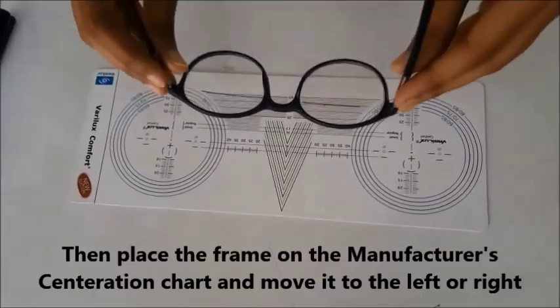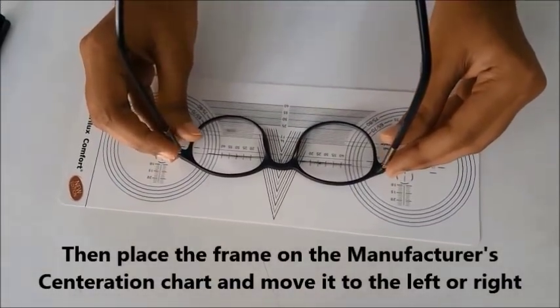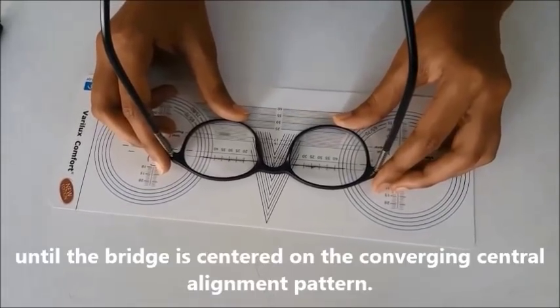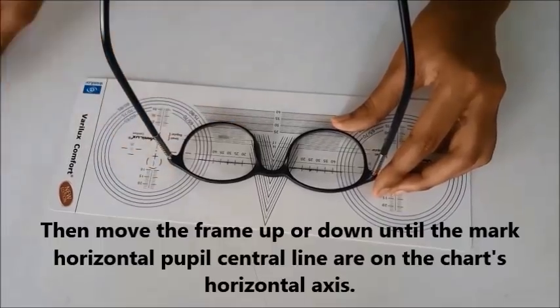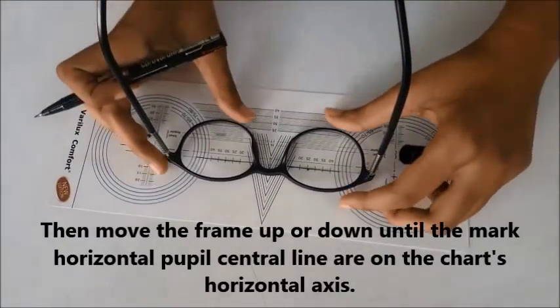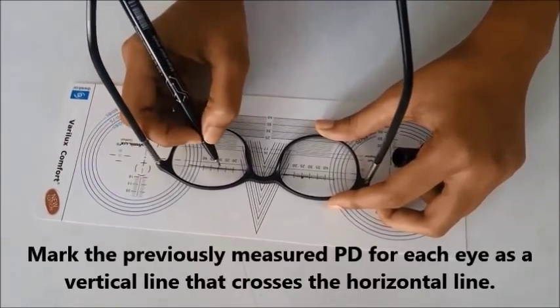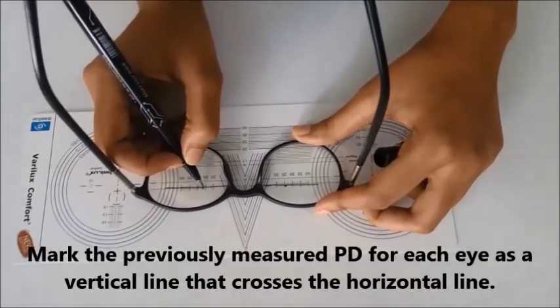Then place the frame on the manufacturer's centration chart and move it left or right until the bridge is centered on the converging central alignment pattern. Then move the frame up or down until the marked horizontal pupil center lines are on the chart horizontal axis. Mark the previously measured PD for each eye as a vertical line that crosses the horizontal one.